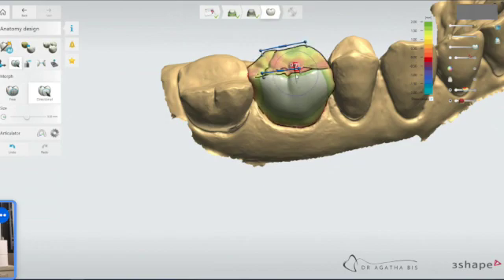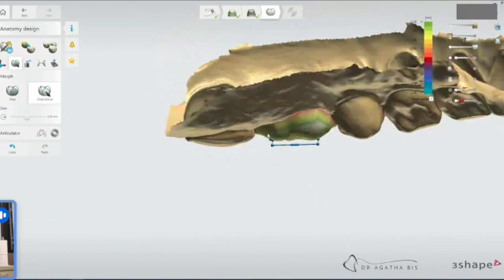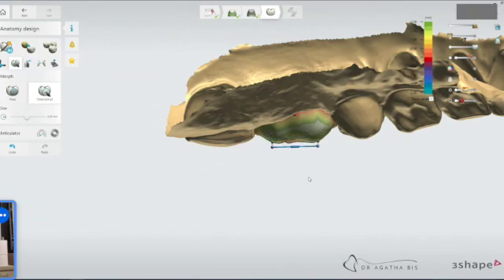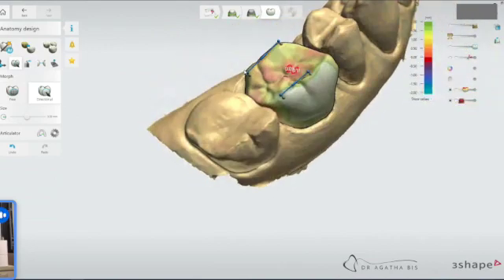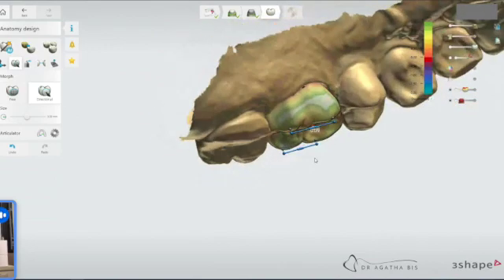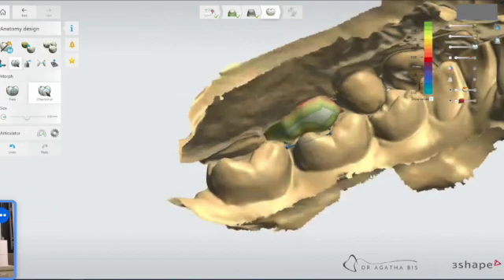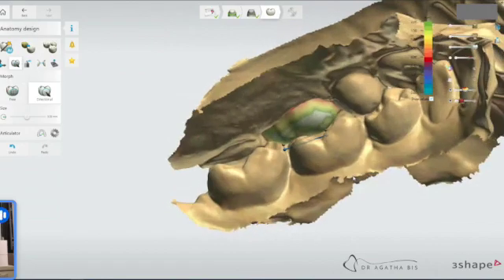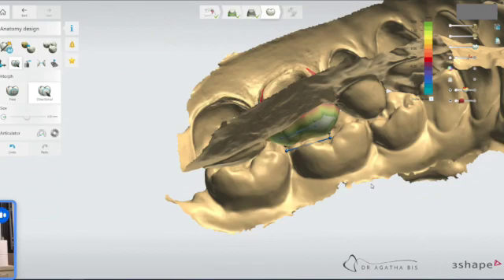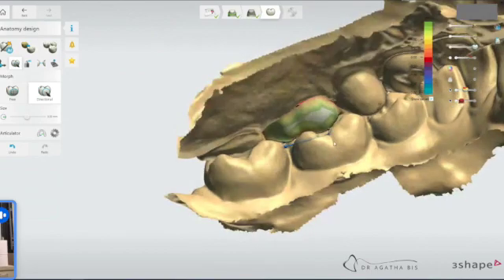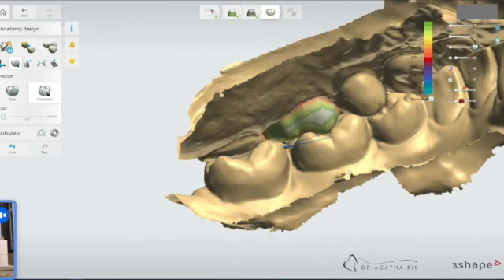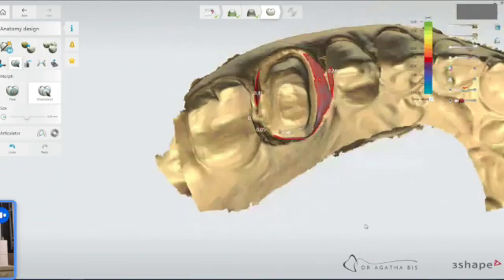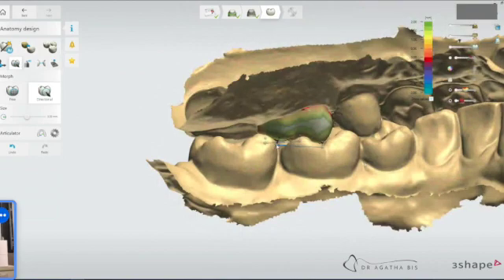So now we're down, I guess you could say, because it is an upper tooth. So pull it right down. Still not in contact with the lower teeth. Let's see how it looks. Still got a bit to go if I want a full contact. It depends on whether or not you want that cusp to be touching. Let's say I do right now. So I'm just going to pull this one down, but not the distal. At what point will it touch? We can always go back and tweak it.